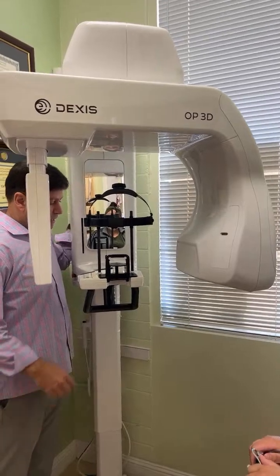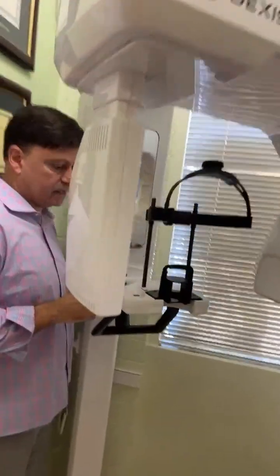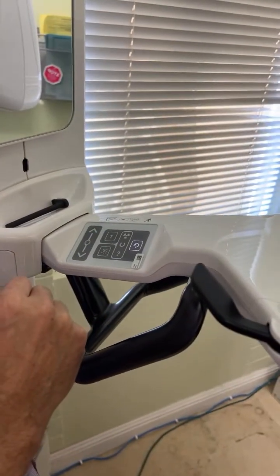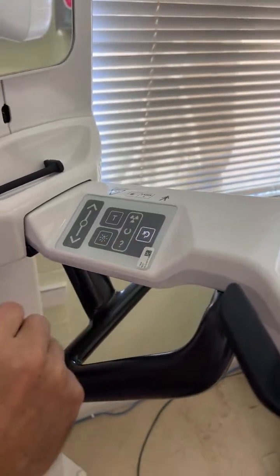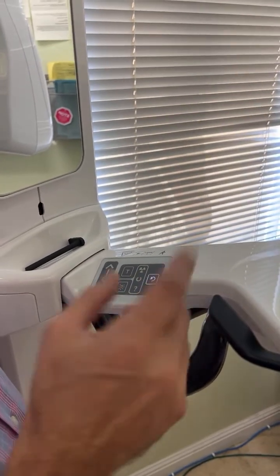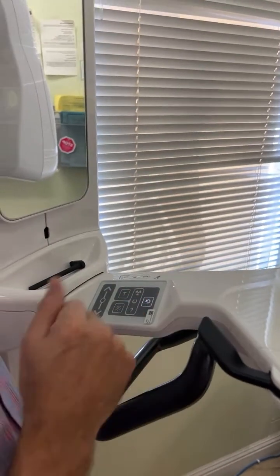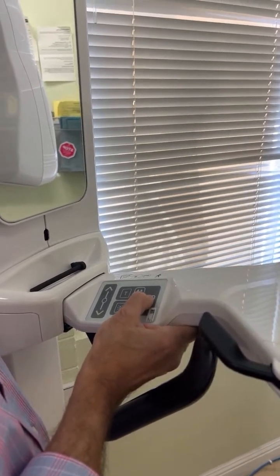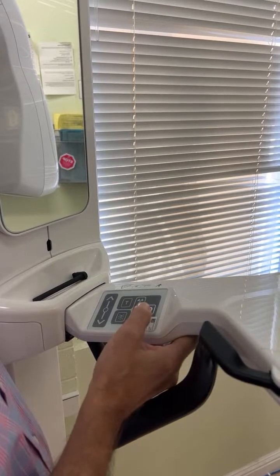Okay. Now it says home button. The home button, you'd have to come over here. But this is the home button. This is the one that has the arrow going backwards. Okay. You're going to use that button a lot. This is the home button. Right. And you need to firmly press it the first time of the day. That's a trick because some people just lightly touch it and it doesn't respond. So you need to push it. Sometimes you have to even wait a little bit. The first time of the day.